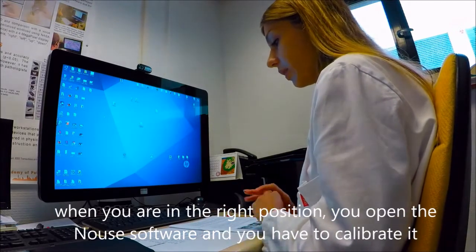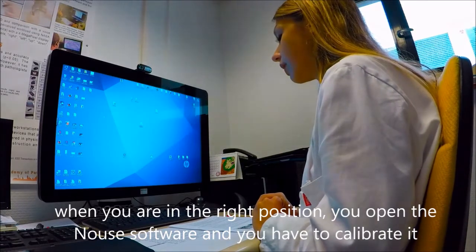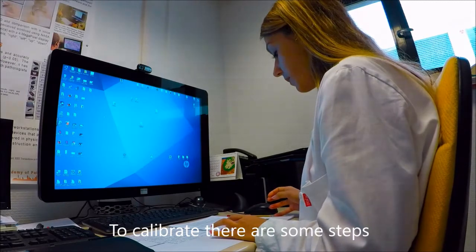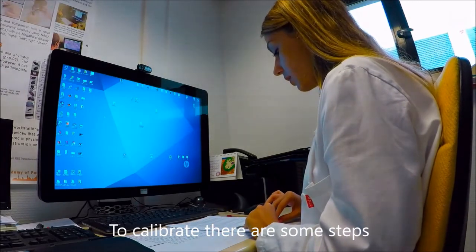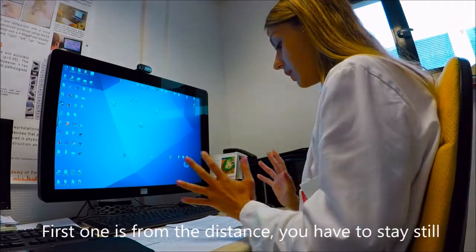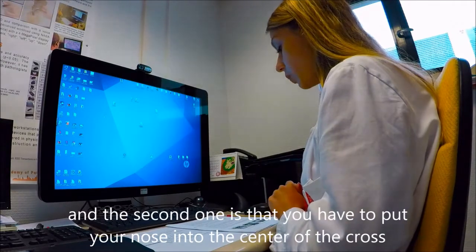When you're in the right position, open the Nouse software. You have to calibrate it. How to calibrate it? There are 3 types of calibration. The first one is from the distance. You have to stay still.